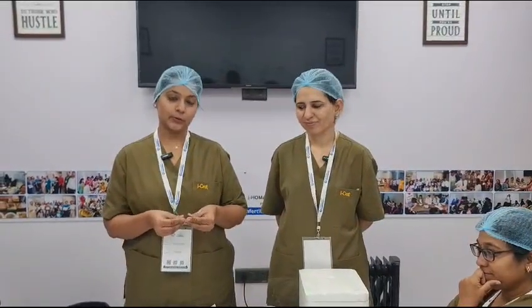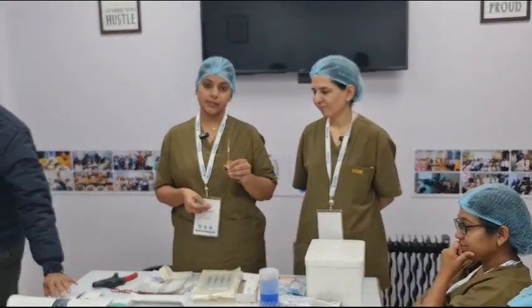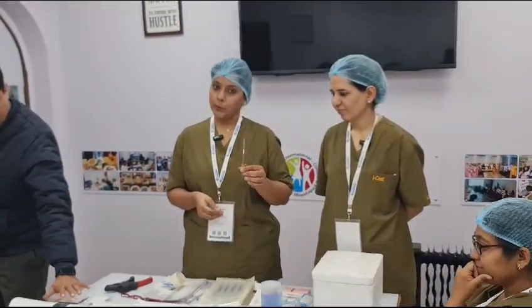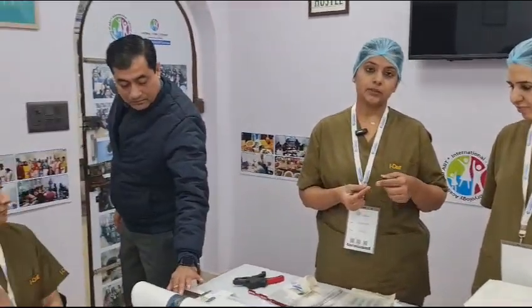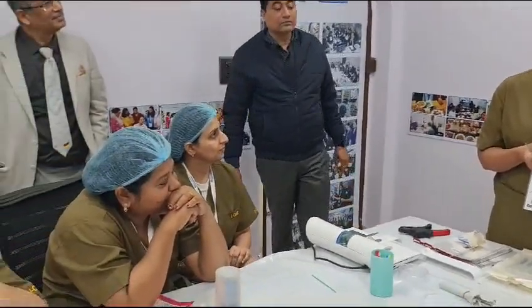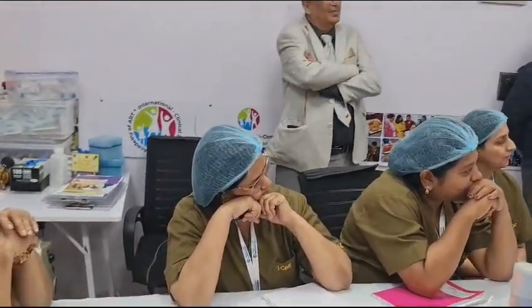Prita from Pune, and I'm going to talk about open system cryo devices. This is one type of device — it is a straw. It is an open system and it has a cotton plug inside. Once the sample is loaded inside and it comes in contact with the media, it seals or 'plucks' the straw.